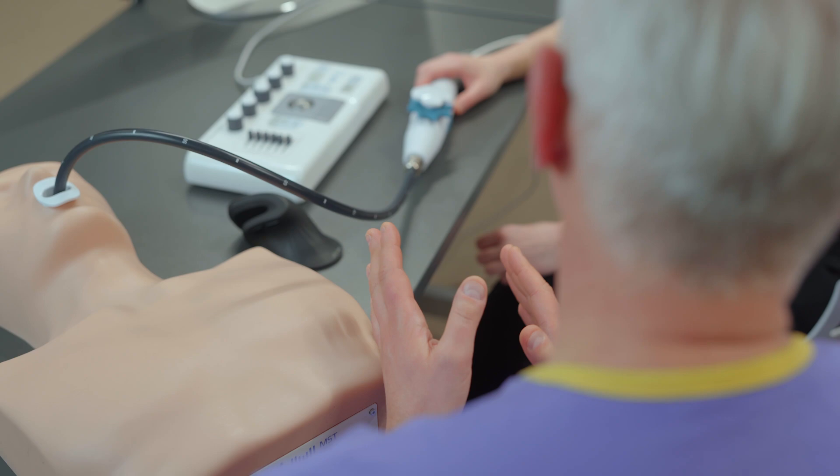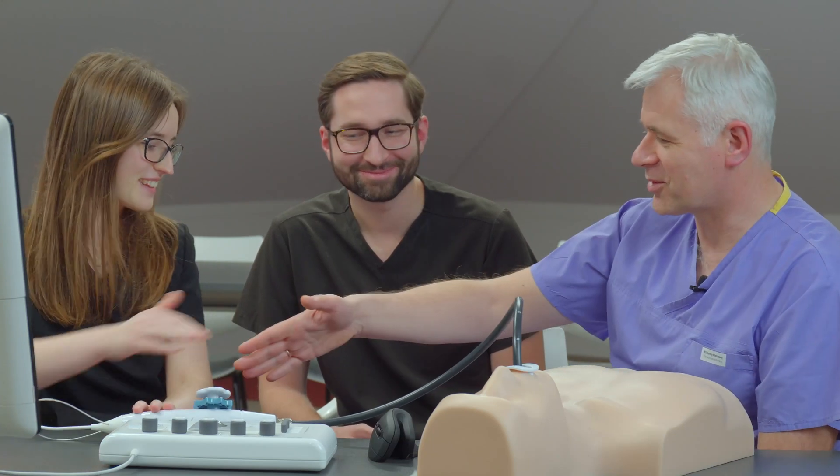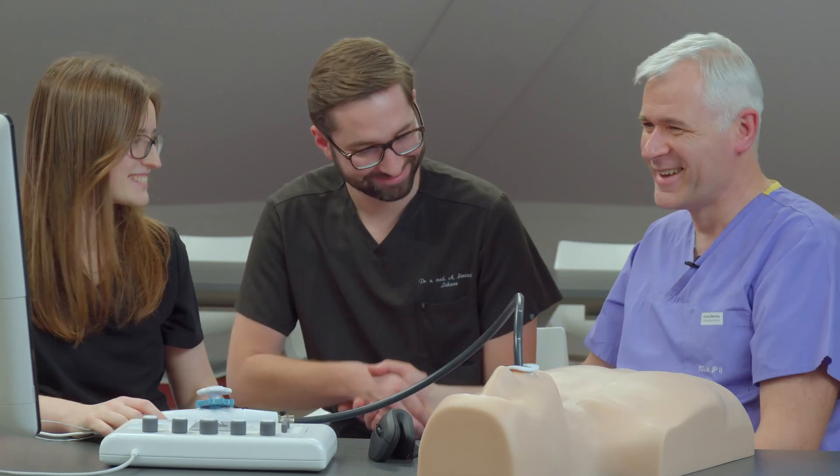Of course some views will not be possible, some will be very difficult. But most cases you will do without much problem if you practice a lot. So I encourage you to continue. Thank you so much. Thank you very much. Congratulations.